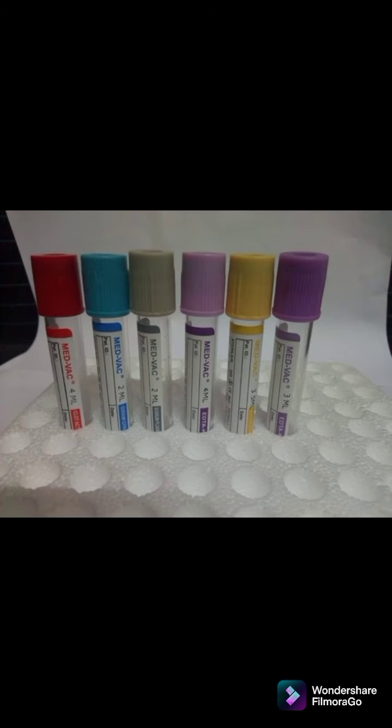Now we'll have a look at our vacutainer tubes, also known as our evacuated tube system. These are the tubes that are transported to the laboratory with your specimens for testing. They all have different color stoppers and they all have different functions and go to different departments. The type of tubes or additive required for blood collection depends on the type of test ordered. There is also a sequence to follow, which is known as the order of draw.